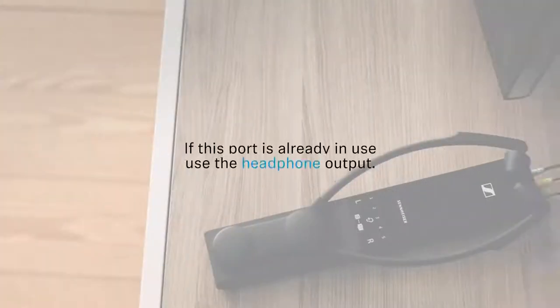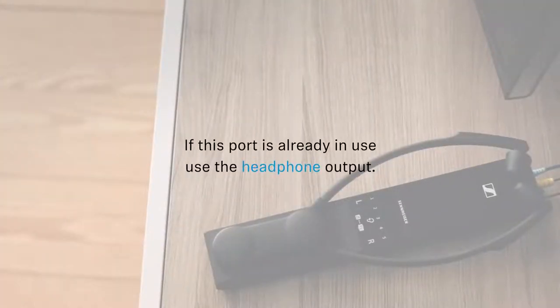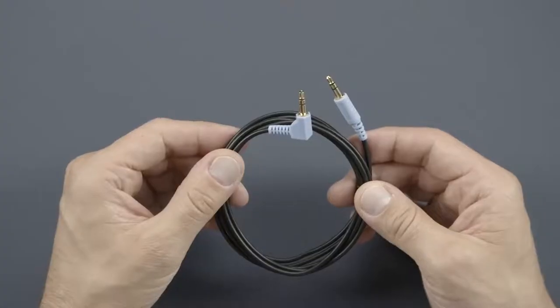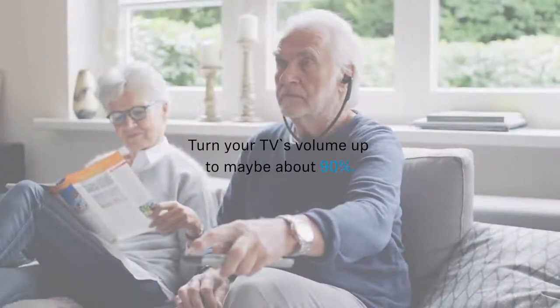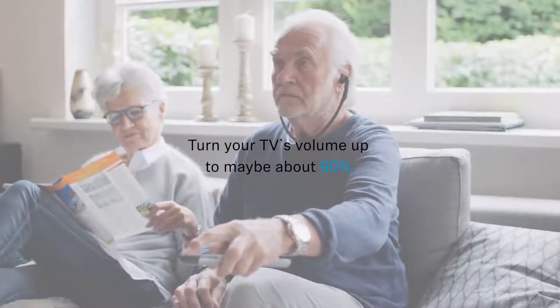If this port is already in use, you could also take your TV's headphone output. For this, take the cable with the blue connectors. Just plug it in and turn your TV's volume up to maybe about 90%. And you're ready to go.